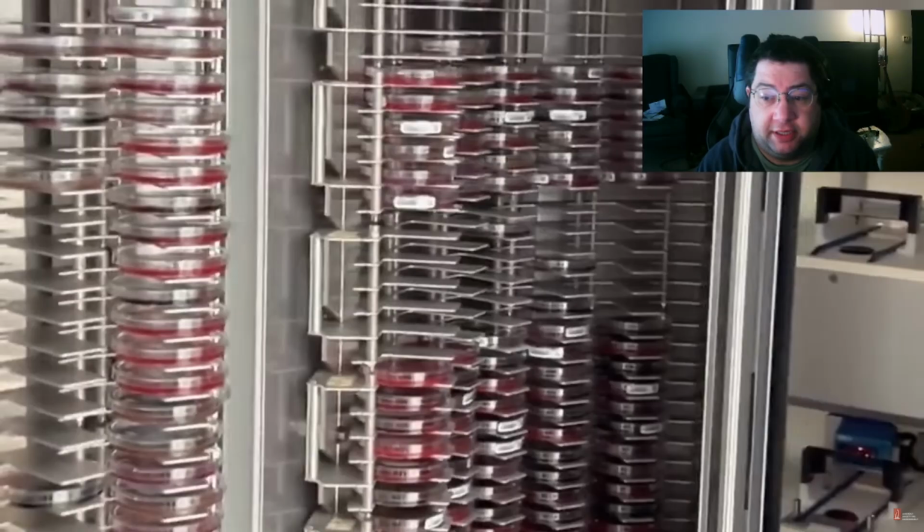And that's really important, because at the little hospital where I work now, you have to take out the plates. Depending on what plates you need, you may have to warm them up. You have to take them out in advance, lay them out under the hood, put the stickers on each one, get your specimen, swab the specimen on the plate, and streak for isolation for each plate. Sometimes you have like 6 plates to do. That's a lot of lab tech time to spend on one specimen. So this cuts all of that down, so the tech can go off and do other things.